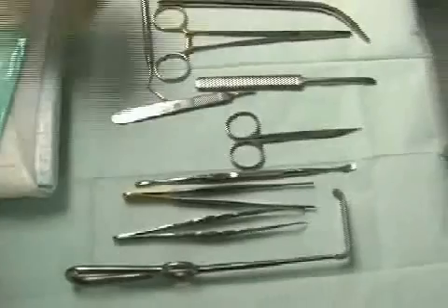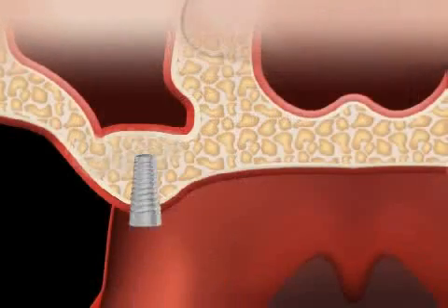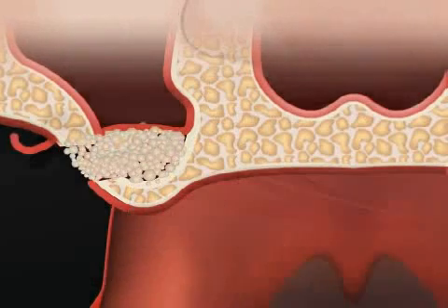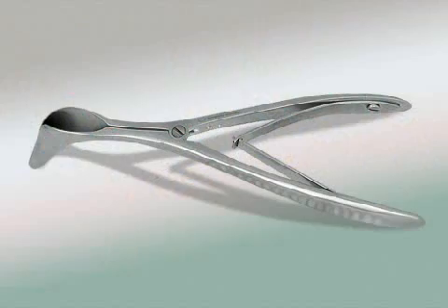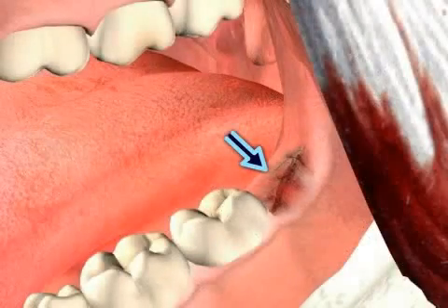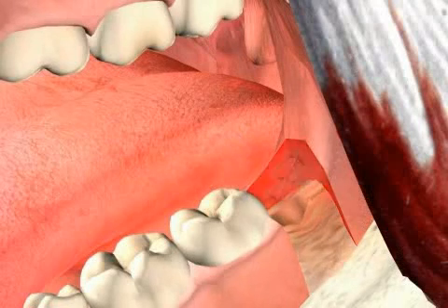Surgical containers are standard in hospitals, but not in doctor's offices. Should you be scheduled for an implant, bone restructuring surgery, or any other surgery, you should pay special attention to hygiene, because sterile instruments are not the norm. Persistent wound and bone infections are possible consequences of non-sterile instruments.